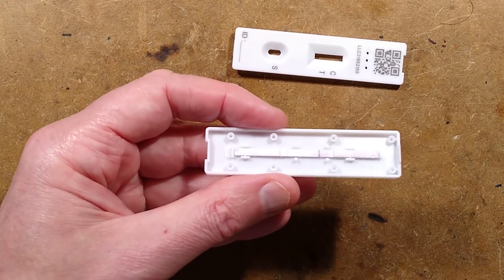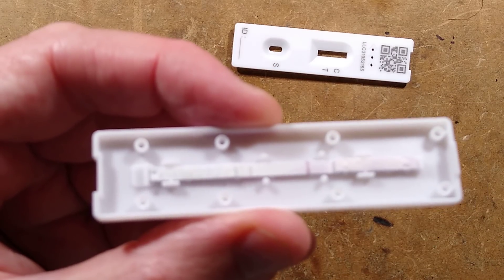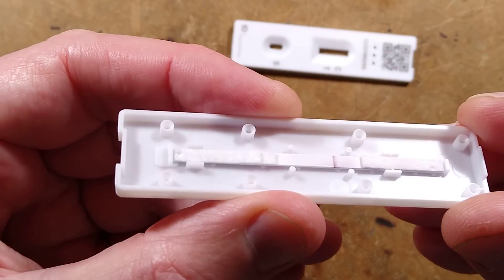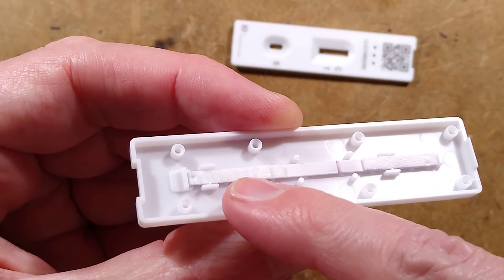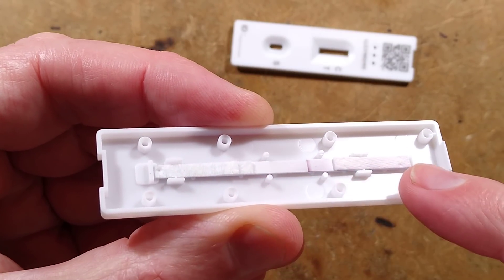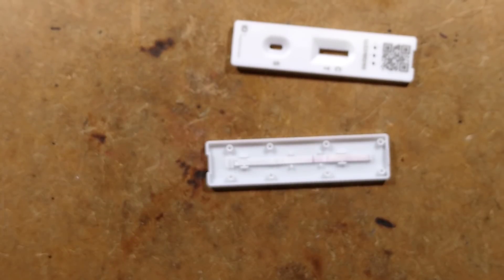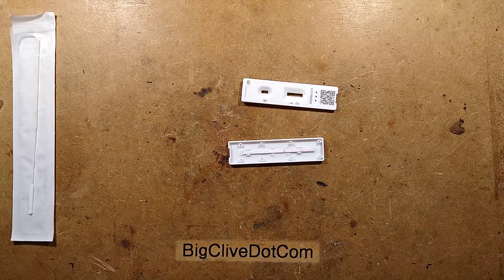I shall zoom down and show you what's in here. In fact, I'll just zoom right up to here so you can actually see the real thing in closer vicinity. So here's a pad that takes a liquid. It soaks along and then it goes to this waste pad here. Let's bring a picture and I'll show you the whole process.